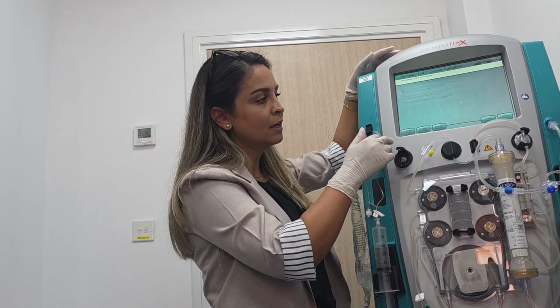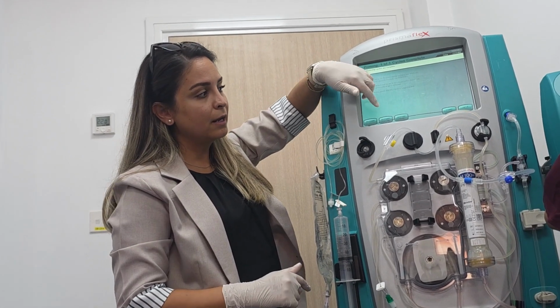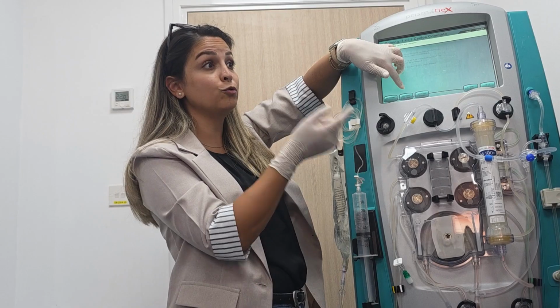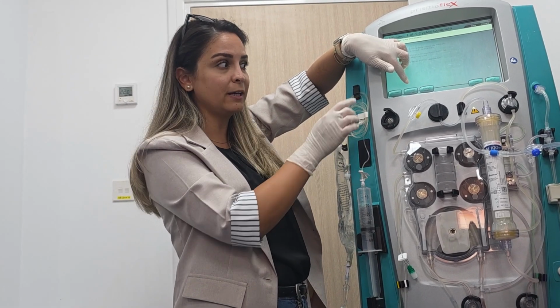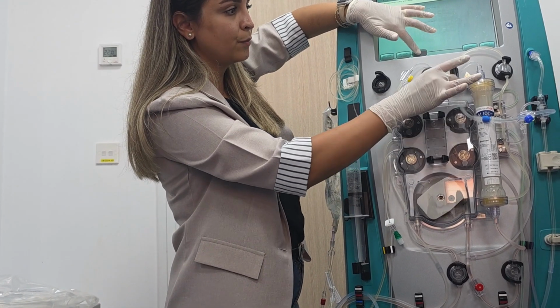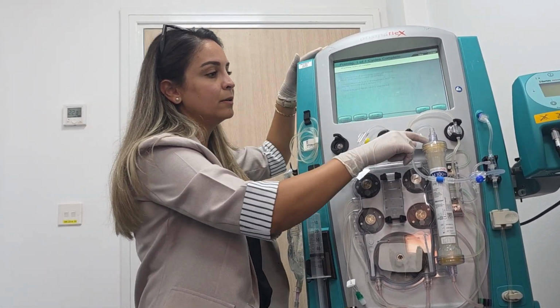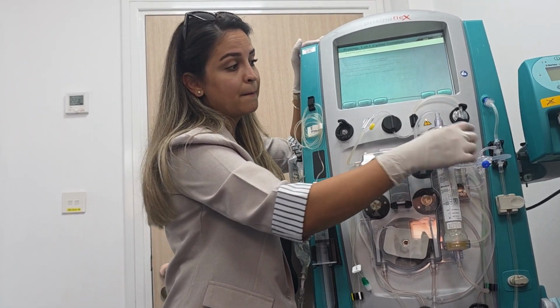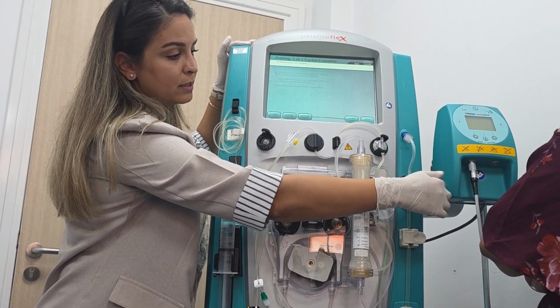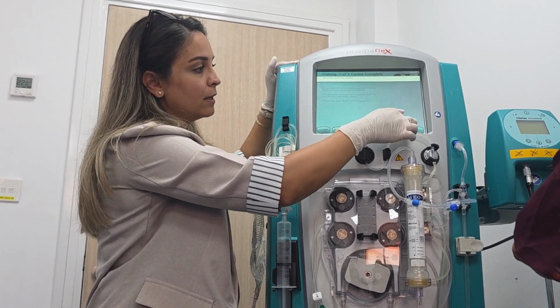Okay. So here we have reprime. To repeat the priming again, full reprime. Here we have reprime calcium line. So see, here I have a special option for the calcium line. If you want to reprime it again, it's already primed, but you can reprime it. Manual prime: if I still have some air bubbles here, I can press, hold, and tap. See, on the top of the filter, I don't have air bubbles. Plus the level in the chamber should be within the line. So within the line, no air bubbles, it means the priming is good. No need to repeat it again. Okay, then we can go for the test.